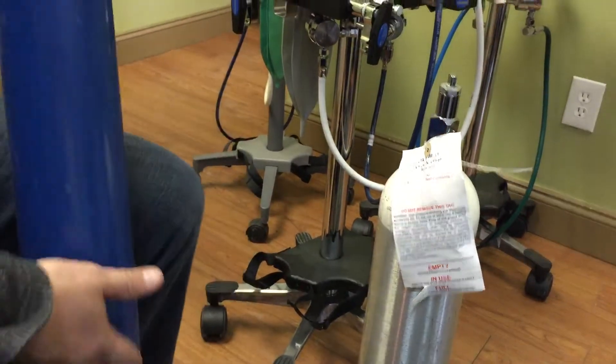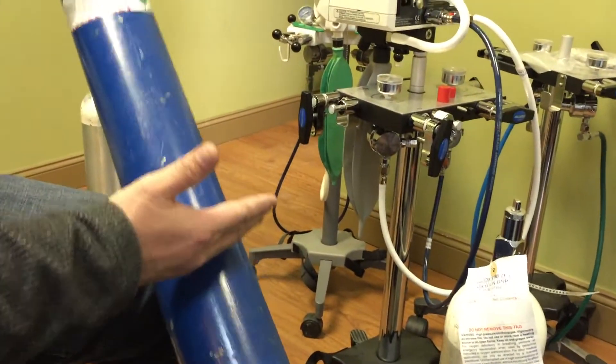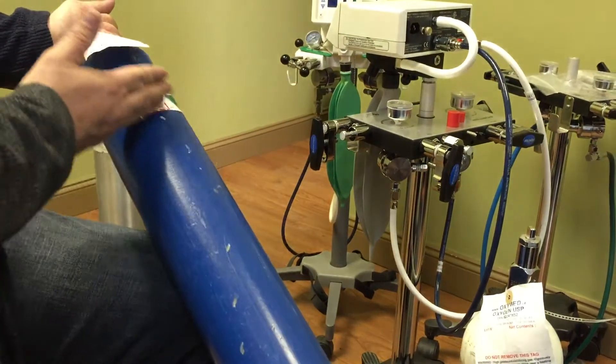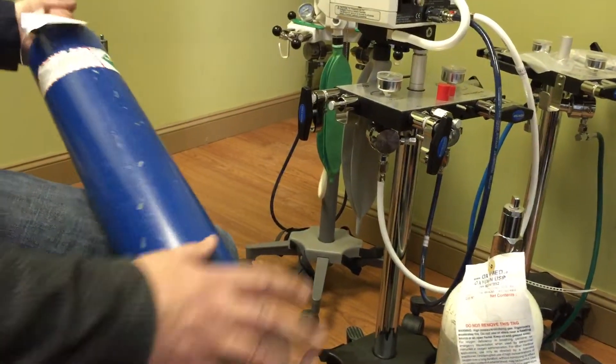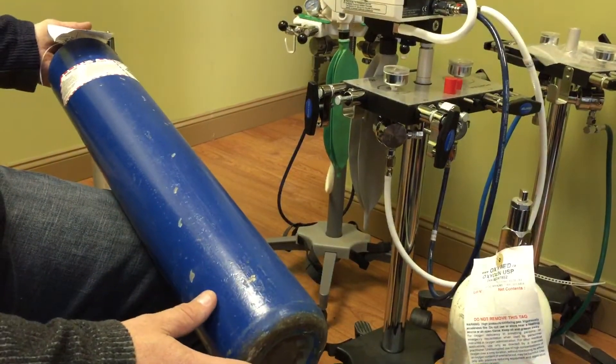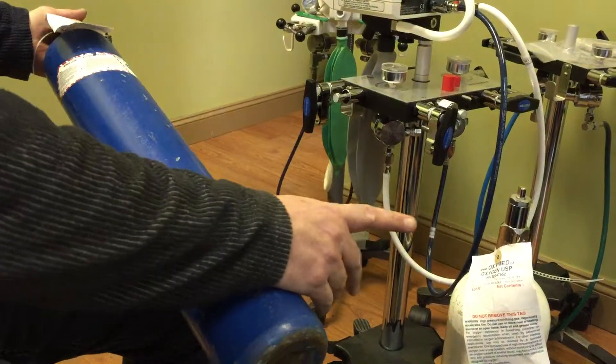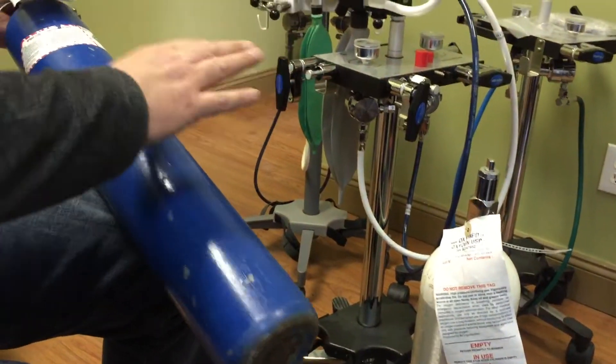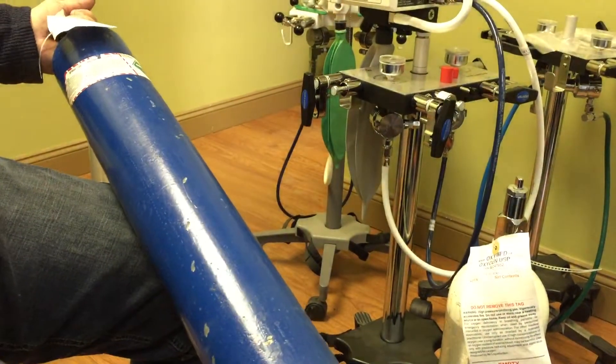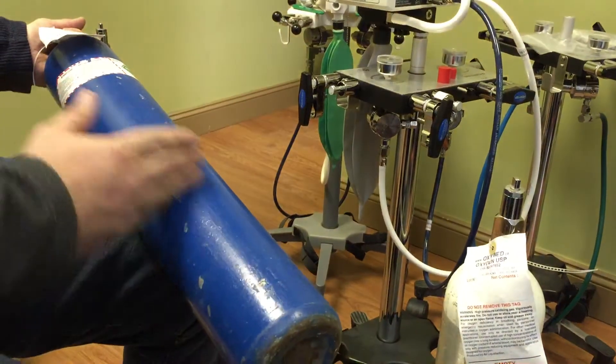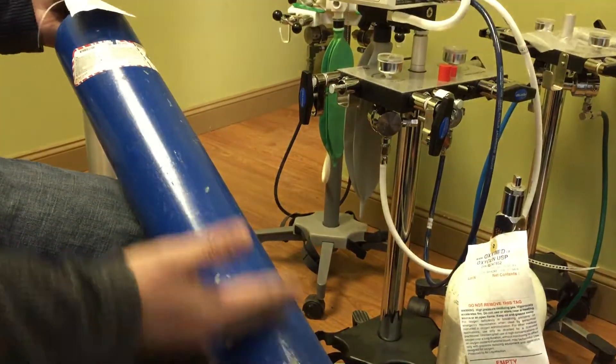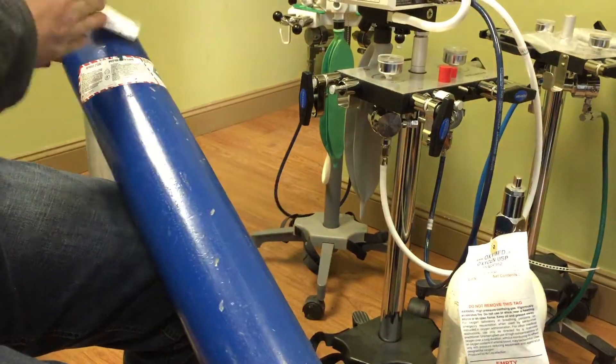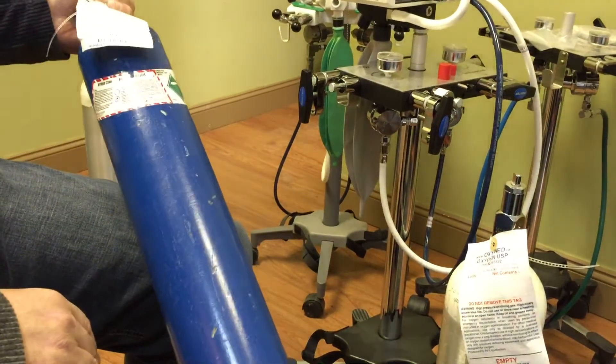What happens with nitrous is sort of like a barbecue, right? It's full of liquid, and what we're doing is we're breathing off the vapor. So you'll see that your nitrous is going to last a lot longer than your oxygen, but what happens is your oxygen actually depletes as you're using it. This does not. This will actually deplete in pressure once there's no more liquid. When there's no more liquid, we're going to be draining off all this gas. Once this gas is gone, that drops off, and boom, we have no more nitrous oxide.